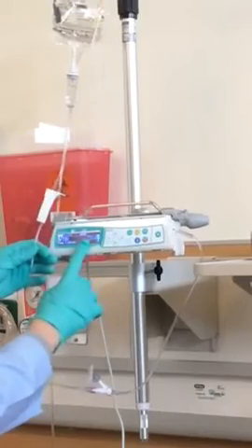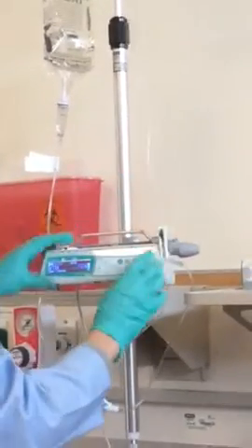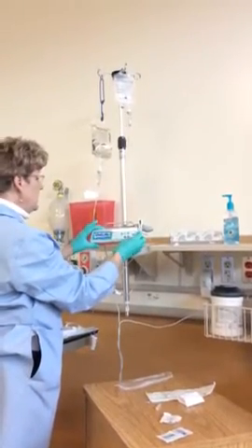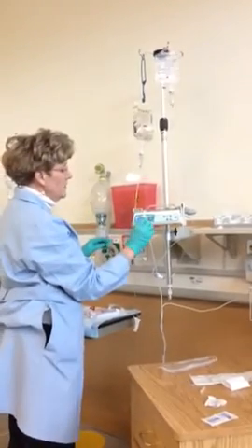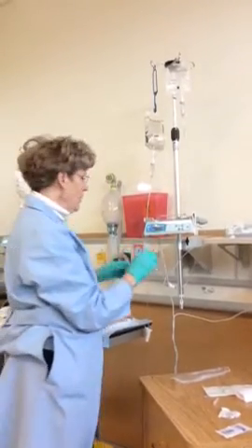So I have volume to be infused 70, so I'm ready to start. I'm going to open my roller clamp and push start. Oops, I guess I better say OK first. OK for the 70 and start. So it says piggy on my screen. I'm running at 50 mils, and I now have 69.90 milliliters left to go.